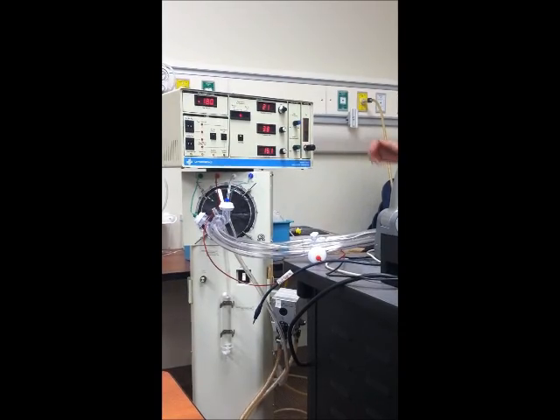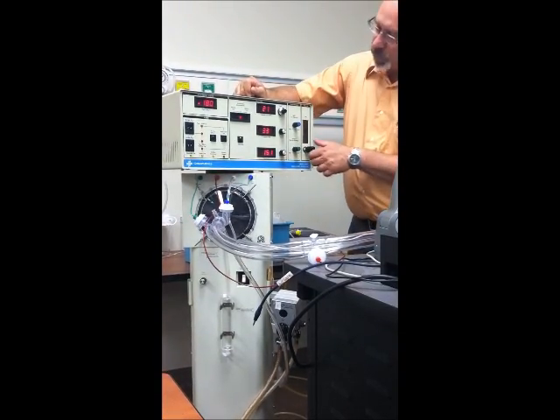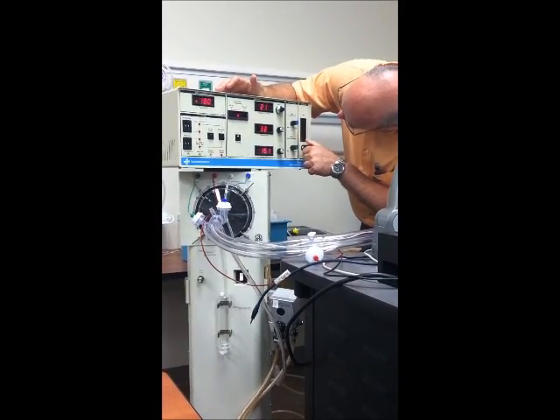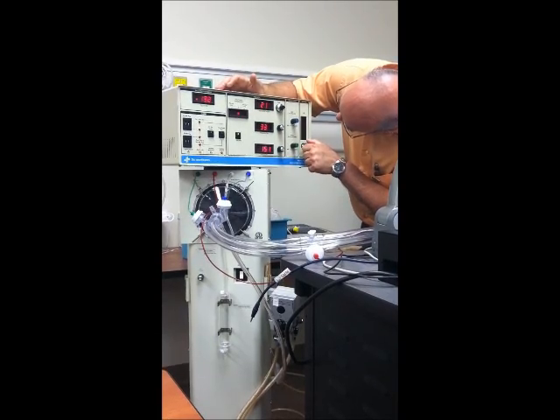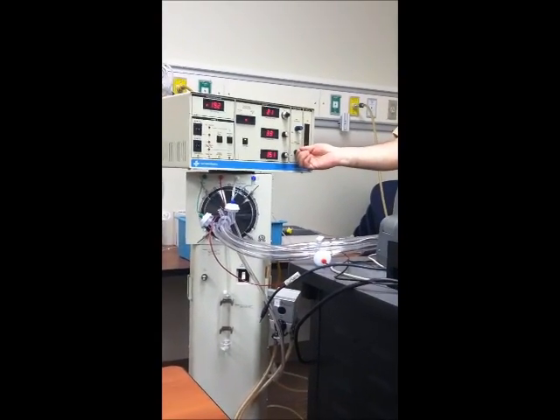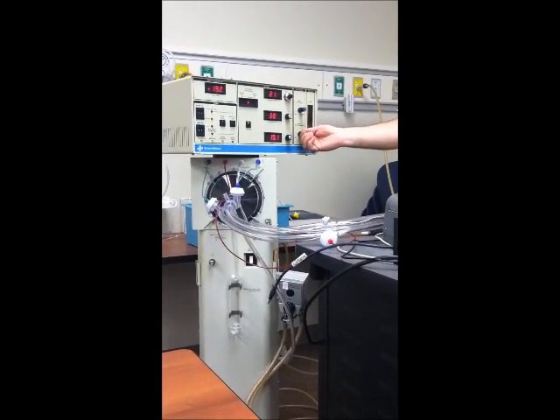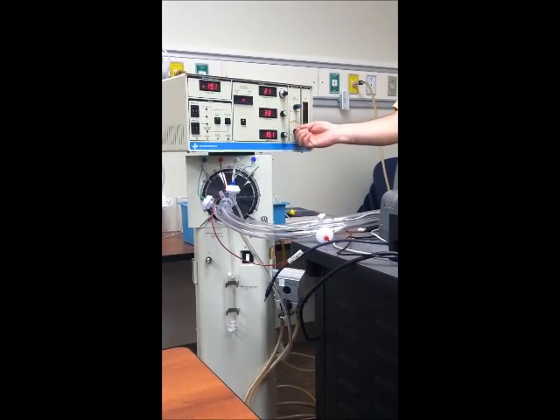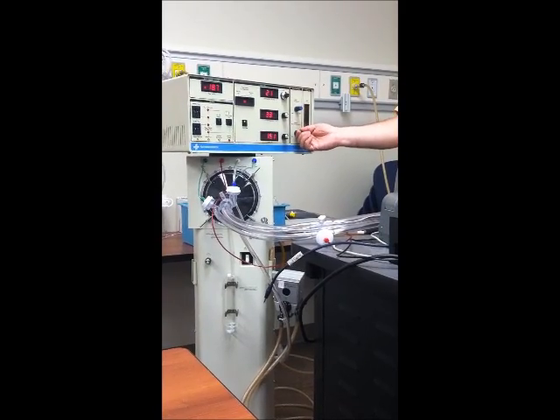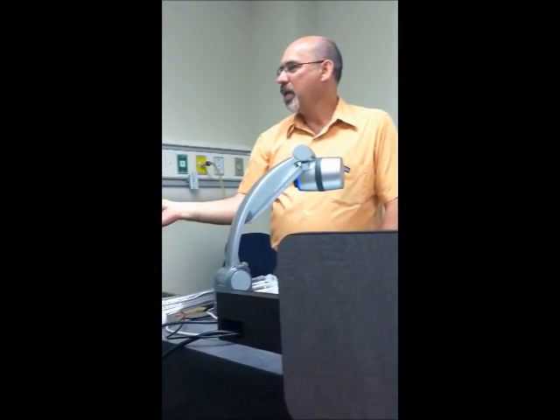Change my bias flow to 25. Now this would be a case where I'll turn this up, but I want to keep my mean airway pressure at 18. So now I'm going to bring this down a little bit. Try not to drive all over the road. If you get too crazy with these knobs, you might go too far down, too far back up, too far down. So I just kind of nudge it down.